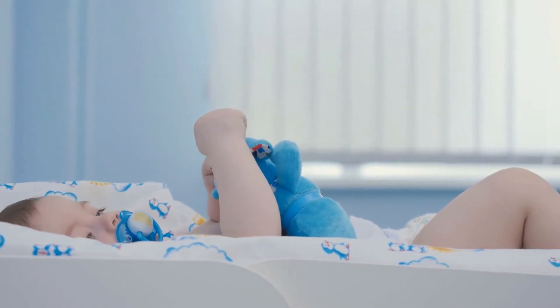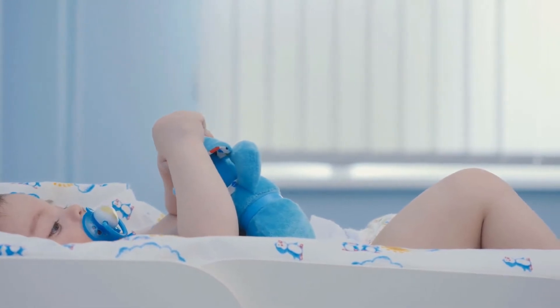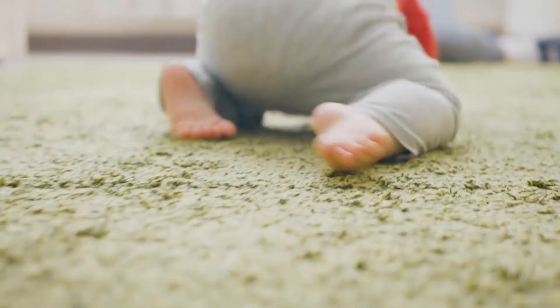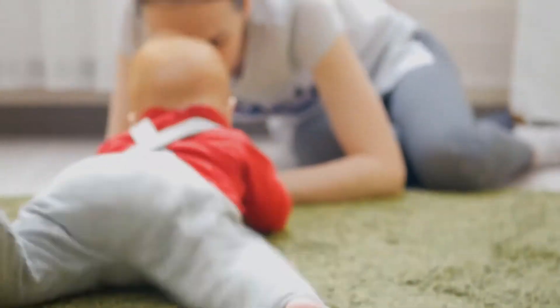The perfect gift for a new mother. Safe and reliable — 5 levels of suction power and 2 sizes of soft reusable silicone tips in the Electric Nose Cleaner provide perfect suction for every size nose while not harming your baby's delicate sinuses.